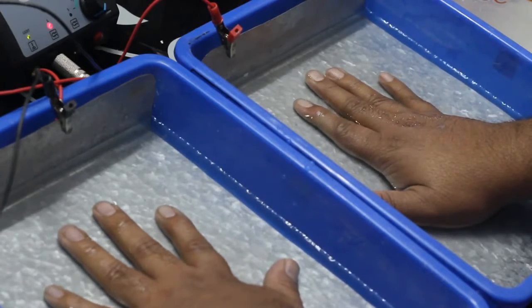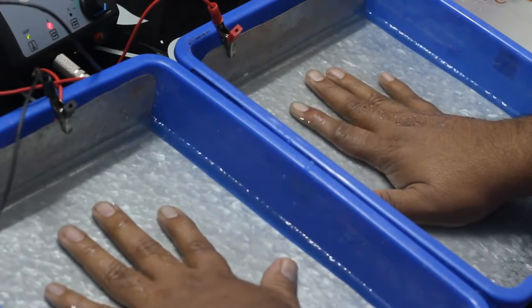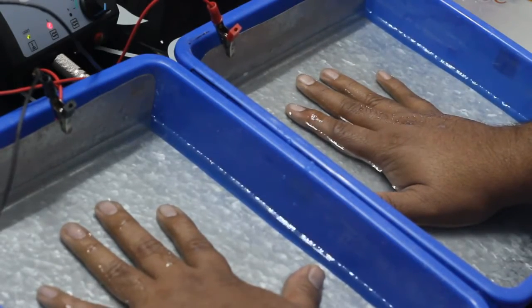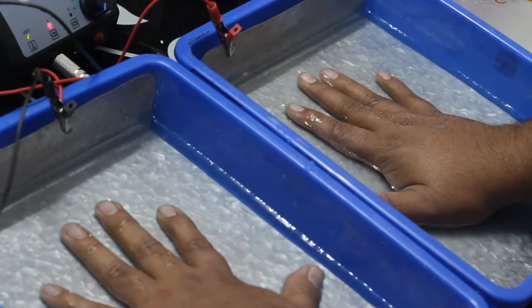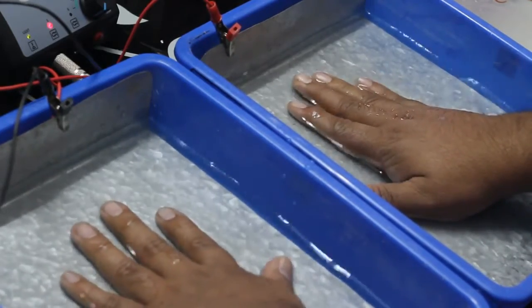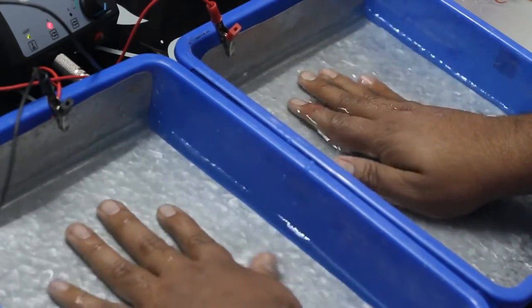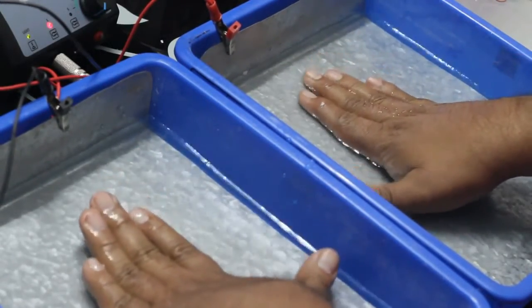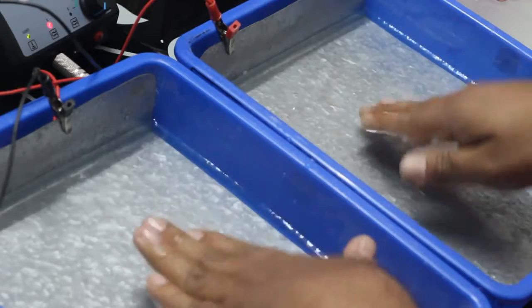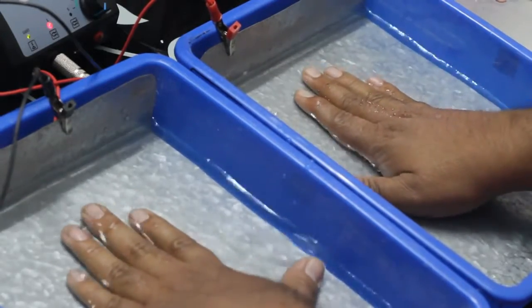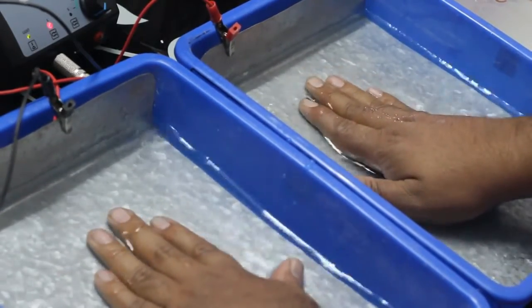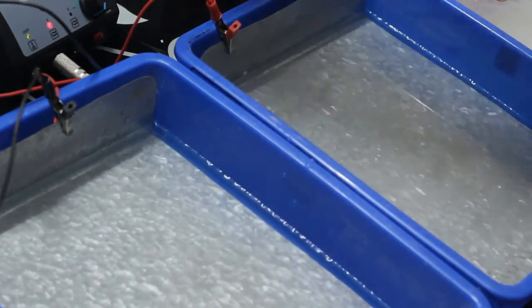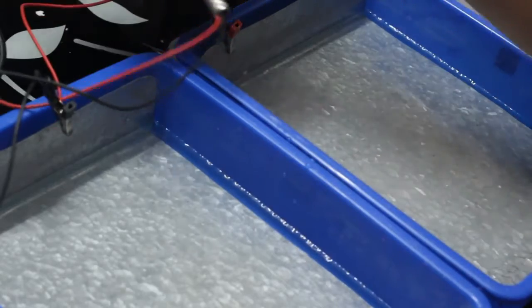Now the maximum intensity is 18.5. I'm going to directly dive in. I'm going to put both of my palms into 18.5 which will be a little bit uncomfortable, but not much. Once you know how to put both of your palms into the trays, you can directly dive in at 18.5. Or if that is very difficult, then you can put the device on the floor and move the button from 1.5 to 18.5. You know, leg fingers are there right? Heels, leg fingers, you can move the intensity with those also.